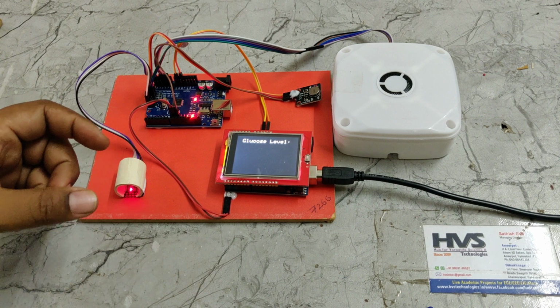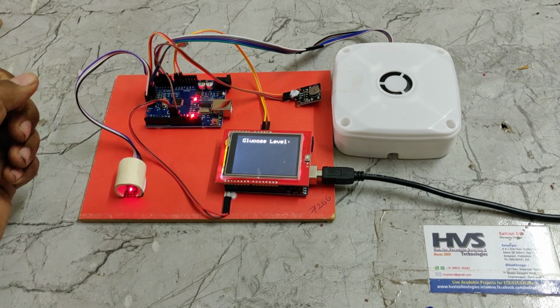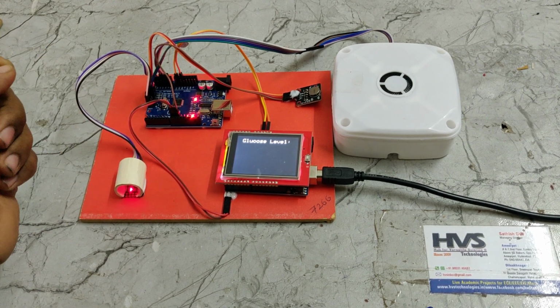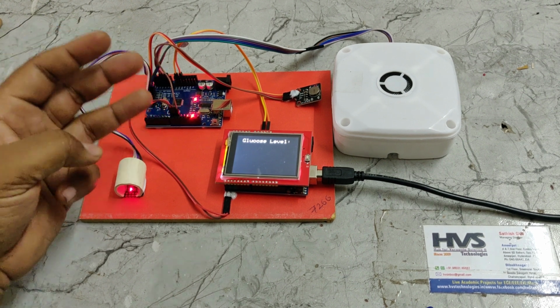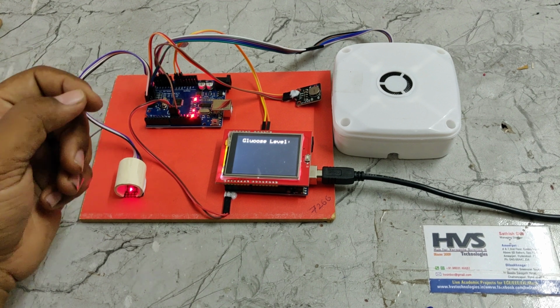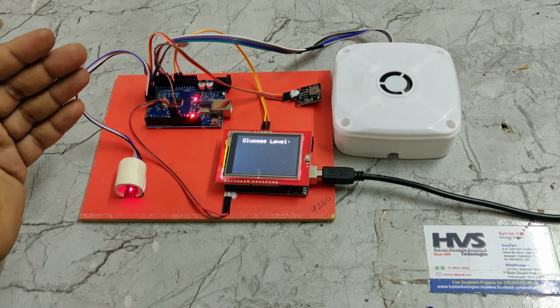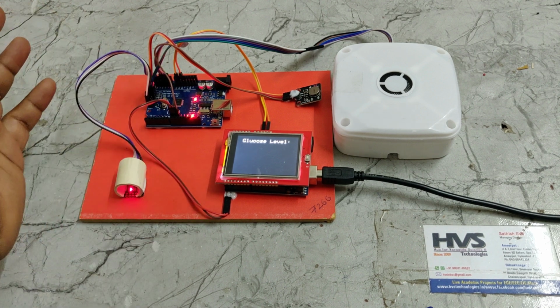Here, we are mainly using three sensors. One is a green LED, which emits green light waves but is not really visible, and the next are a red LED as well as an IR LED. These three sensors are mainly used to get the blood density. Based on the blood density, we estimate the glucose levels. Whenever the glucose levels are higher than normal, the density of the blood increases from the normal level.